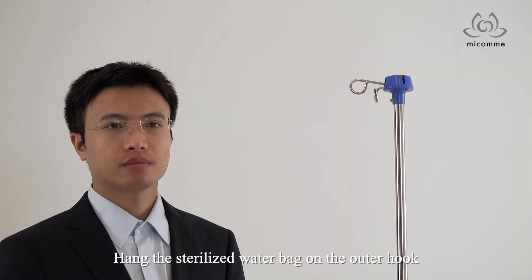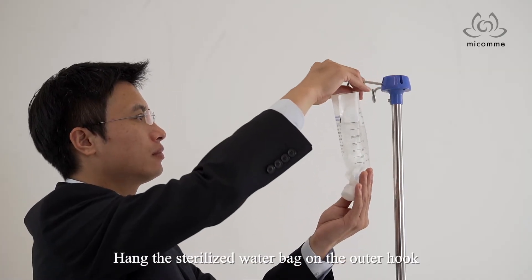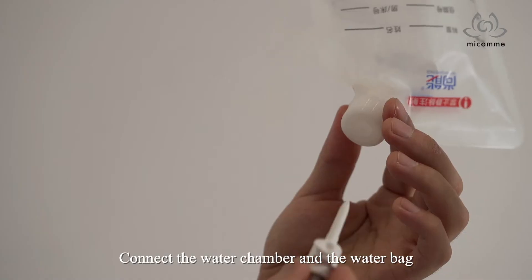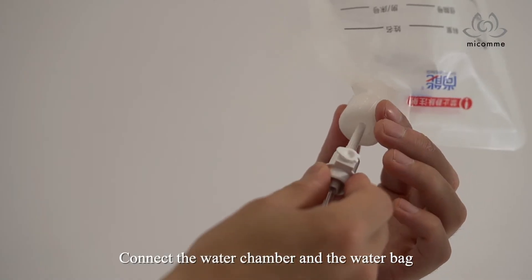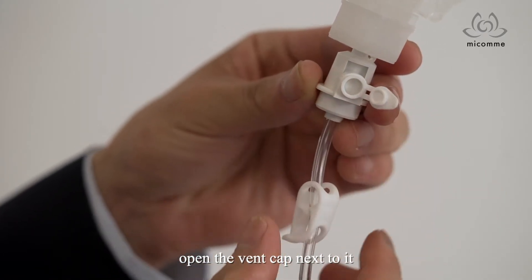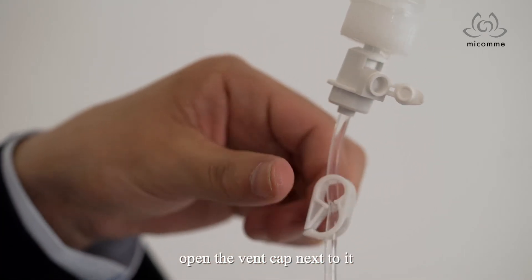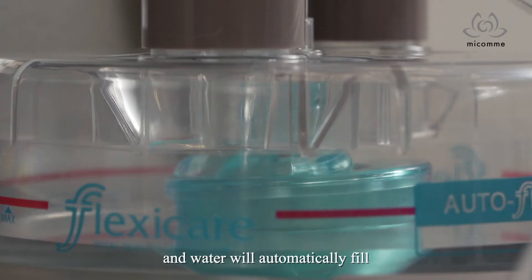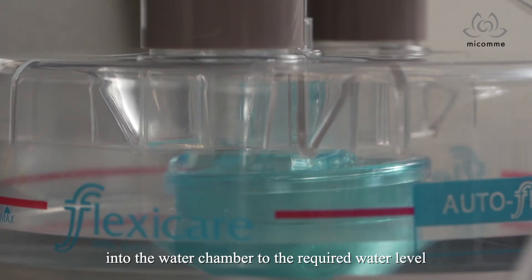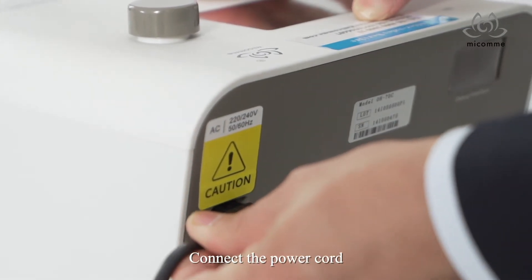Hang the sterile water bag on the outer hook. Connect the water chamber and the water bag. Open the vent cap next to it, and water will automatically fill into the water chamber to the required water level.